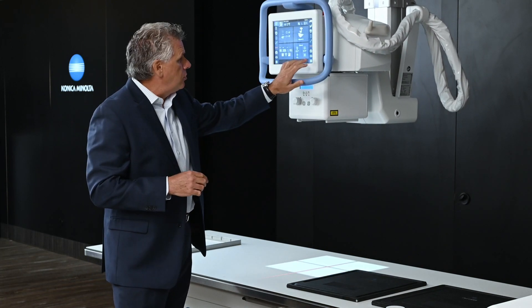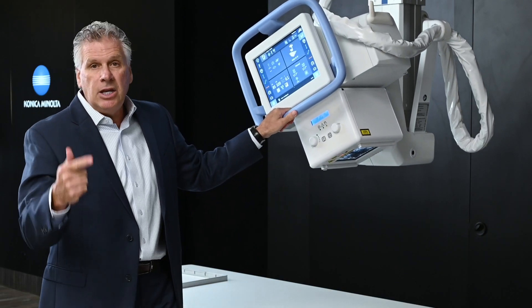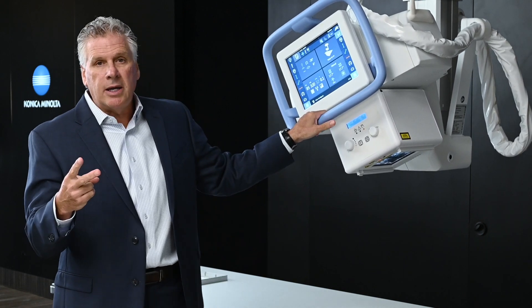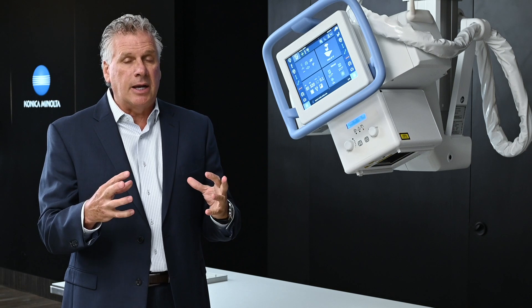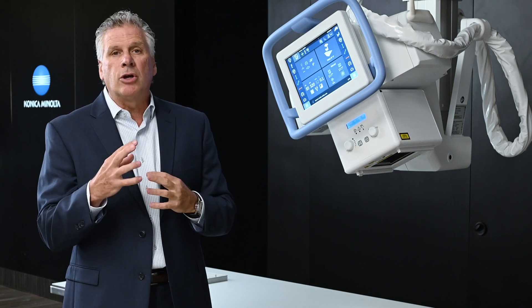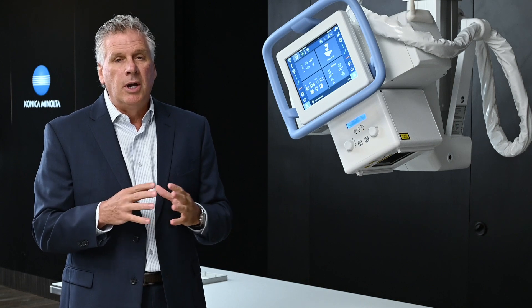All of the features built into this item — including stitching, DDR, auto-tracking, and table stitching — are all the features needed for a high-end x-ray room, as well as the ability to grab and go. This has created the most advanced overhead tube crane in the world by far.